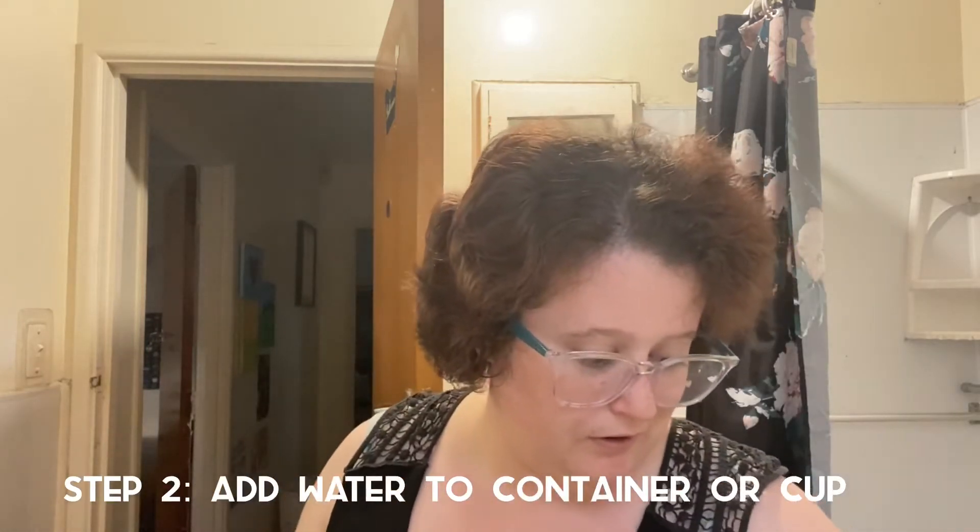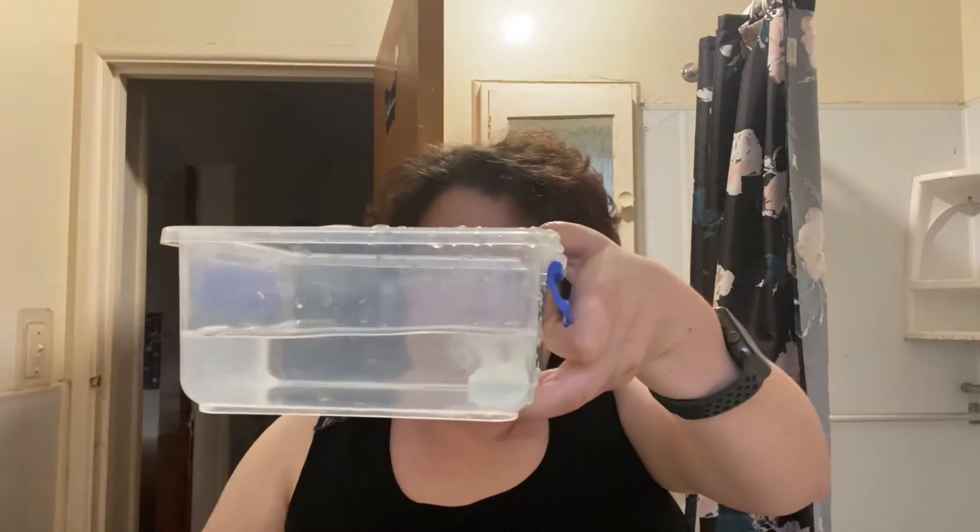Here is the container. I'm going to turn the tap on — I don't want to get it too warm because they don't recommend using heat, but Retainer Brite works best in warm water, so I'm just warming up the tap just a little bit and filling it to about half. I'm going to open this — I need to order some more in the new year, I've still got about half a month's supply left but I don't want to run out. They smell a little bit like mint but a little bit like not mint. You drop it in and let it dissolve, then put the tray in there while it is beginning to dissolve.